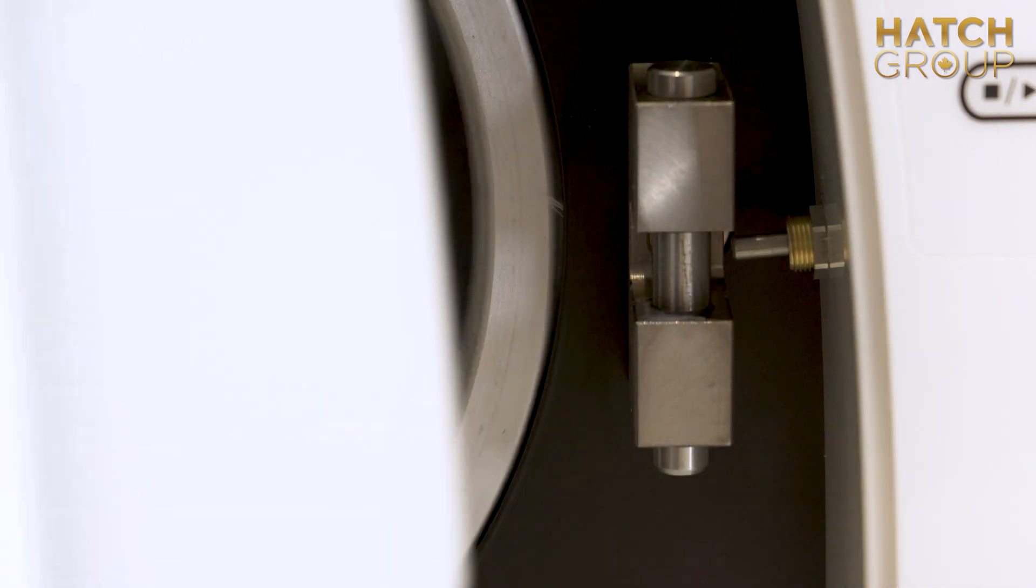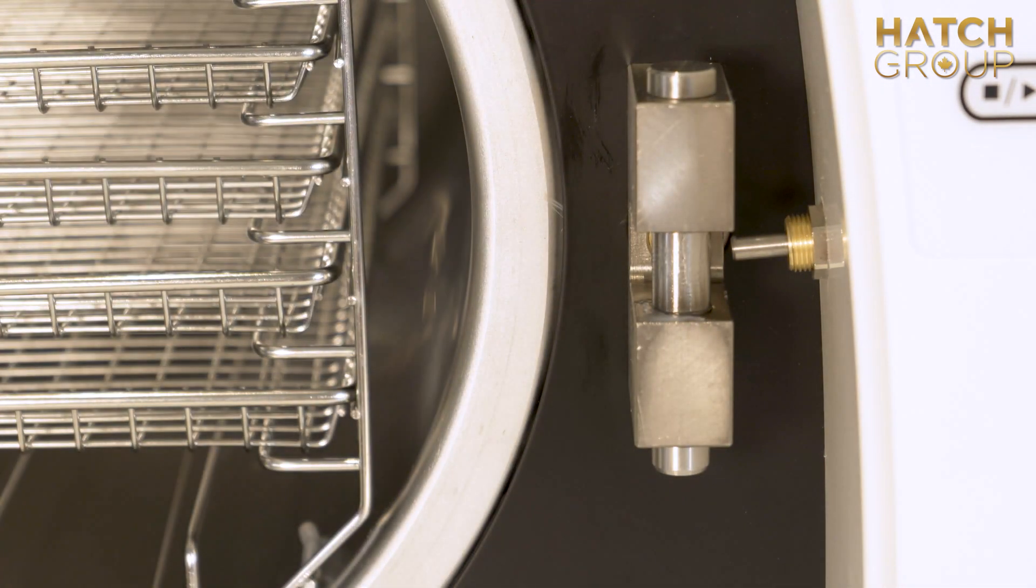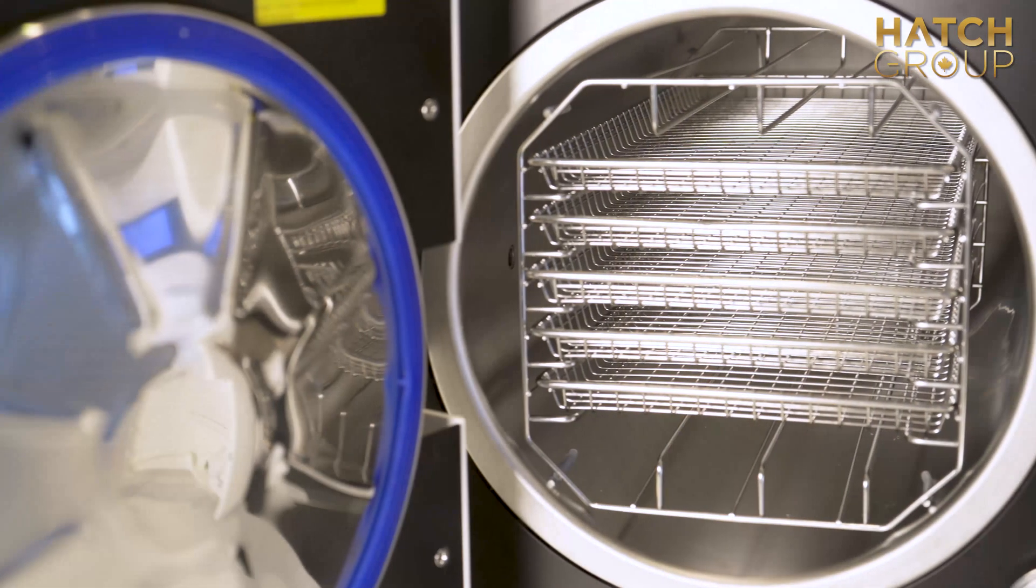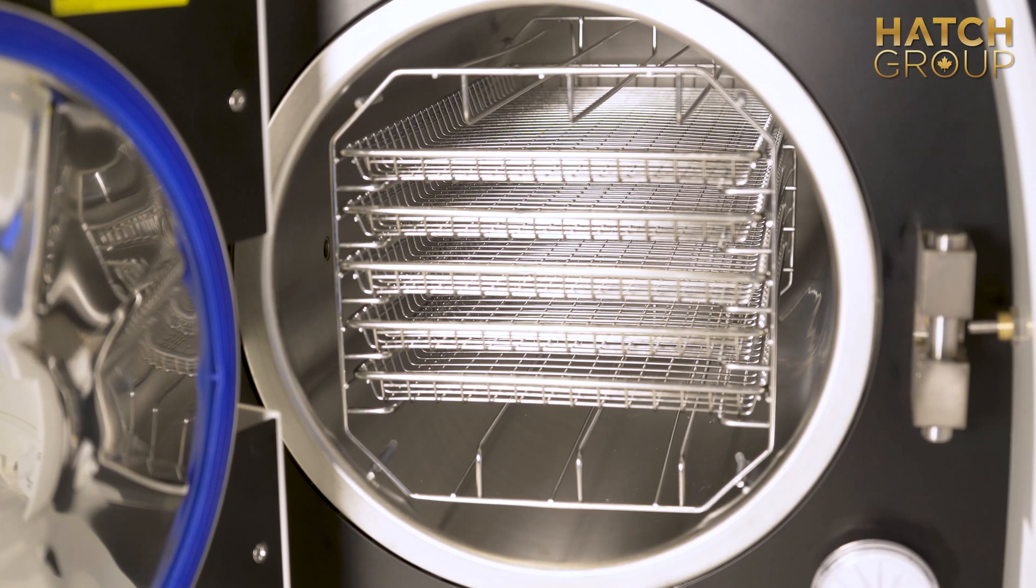All three versions of our SmartClave autoclaves have been rigorously tested, inspected, and shipped from our manufacturing headquarters in Mississauga, Ontario, Canada.